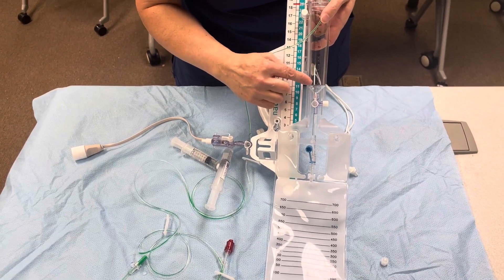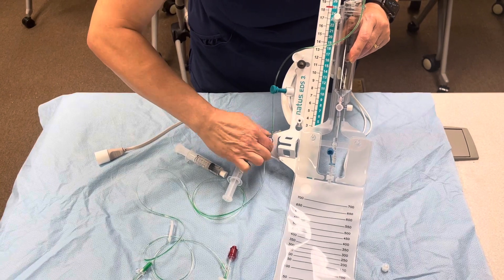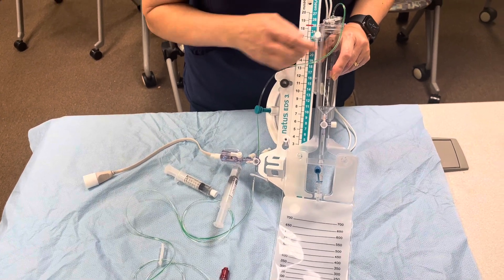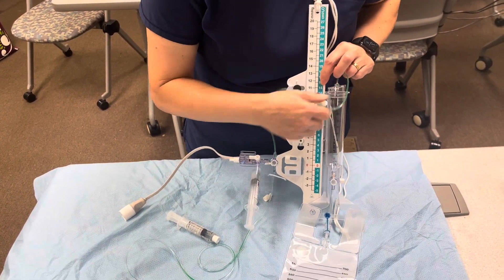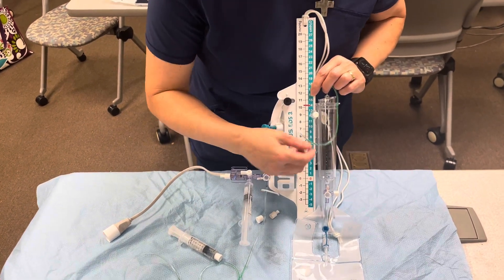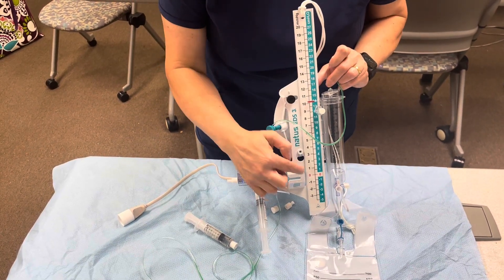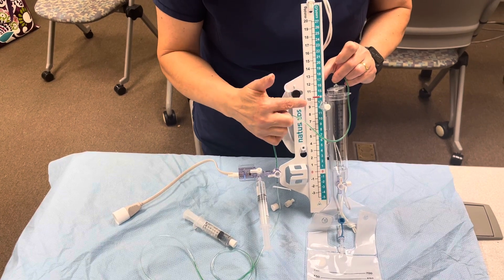This piece should be off when we're measuring every hour how much the patient is draining. Once the EVD drainage is placed, you want to confirm a couple of things with the neurosurgeon. First, what is the drainage level — most of the time it's going to be ten. We're not using centimeters of water anymore; we're using millimeters of mercury across the board. Your level meter has both millimeters of mercury and centimeters of water, but all our monitoring and Meditech documentation uses millimeters of mercury.